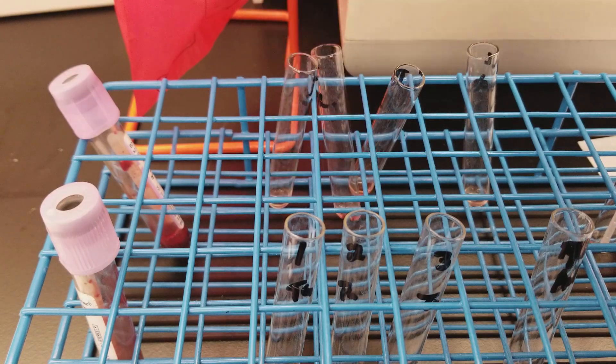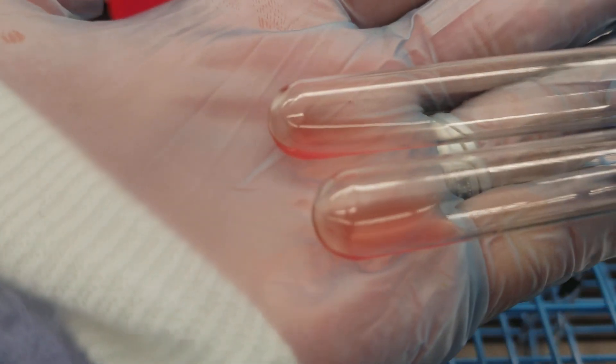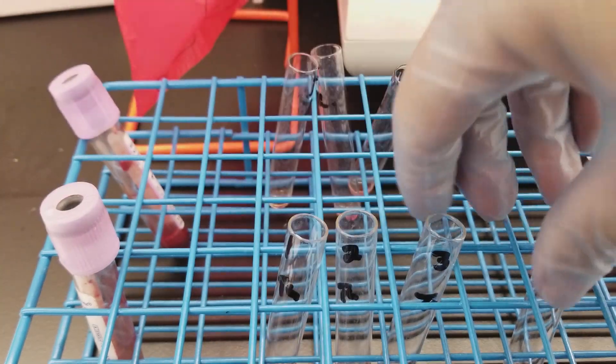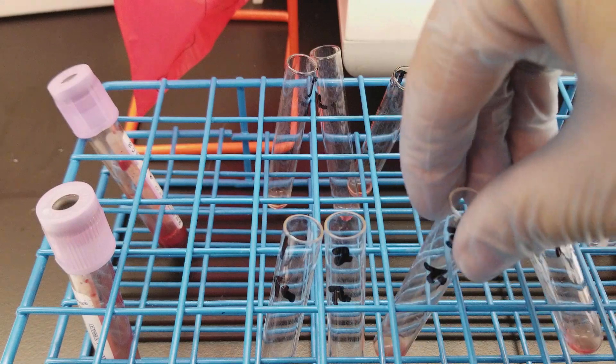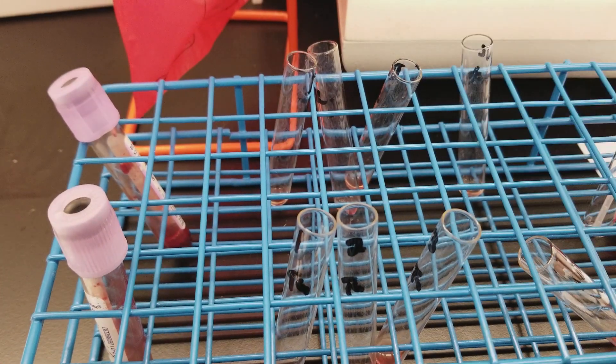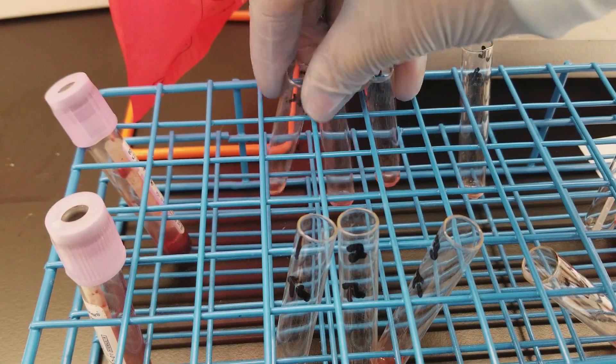Okay, so as expected, cell one and two for the negative patient are negative, and three and the auto are negative. Whoops on that patient. Oh well, I'll get that in a minute. Okay, so one and two of the positive patient, let's see that.